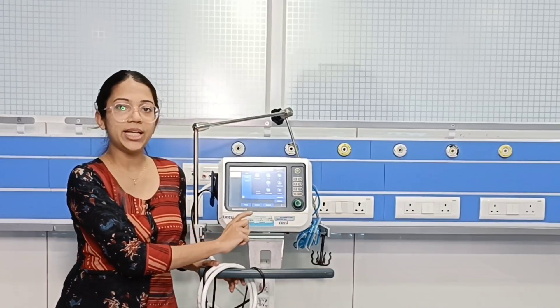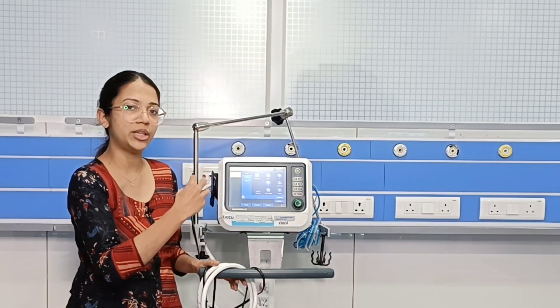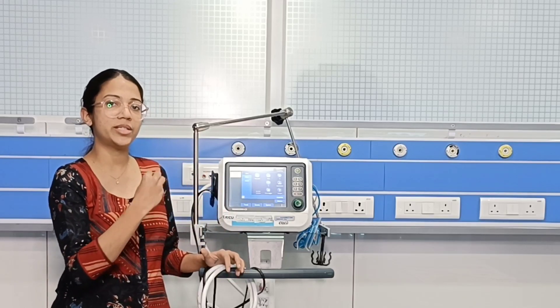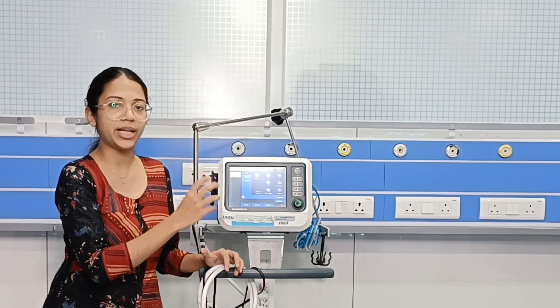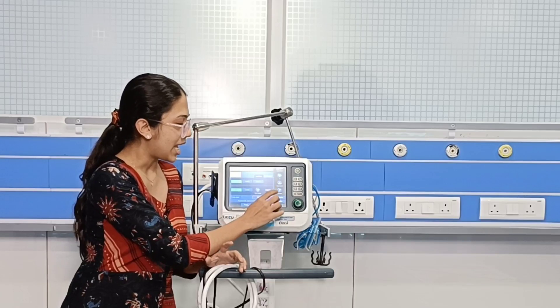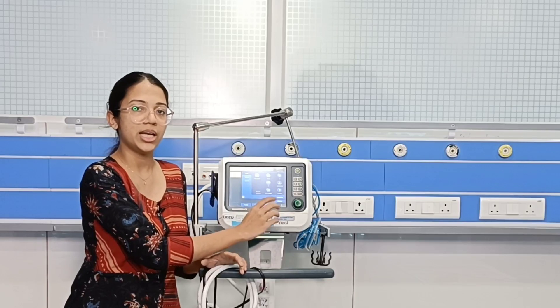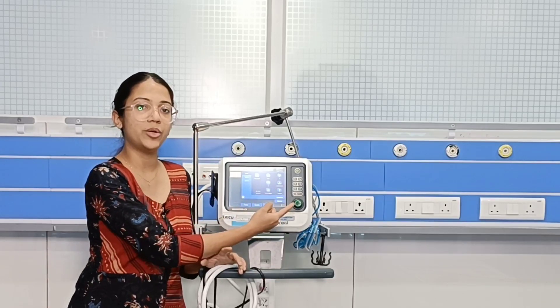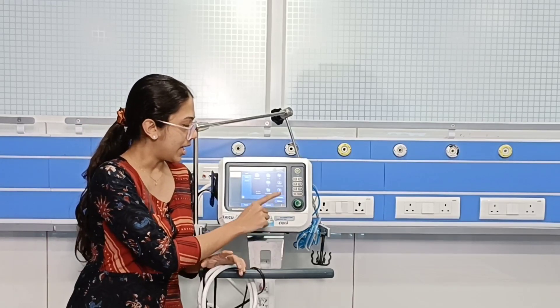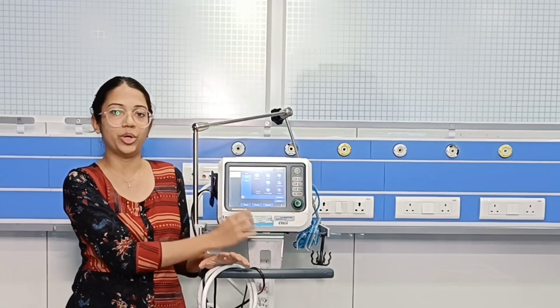One advantage is that we can keep a targeted tidal volume. Even if the patient is not fully improved and is only triggering weakly, the ventilator will support that breath so the patient reaches the set tidal volume. We can also set FiO2, so in case of hypoxia, the patient's oxygenation will not be affected in this mode.